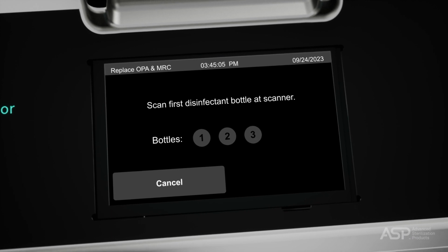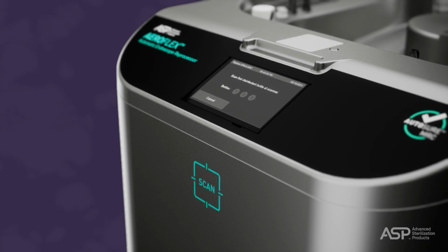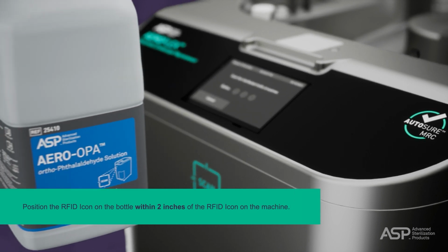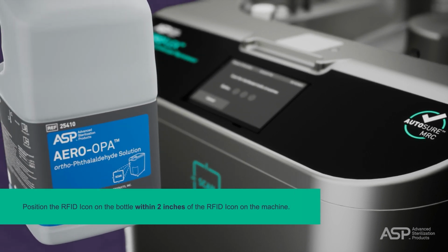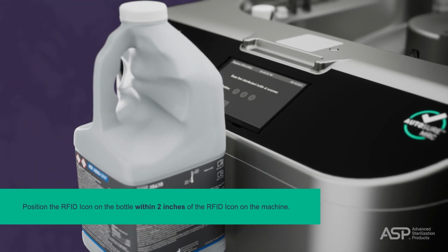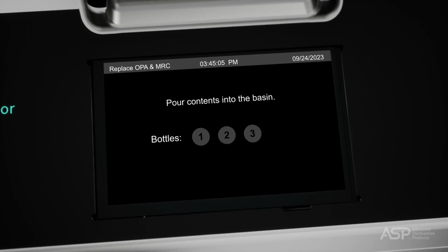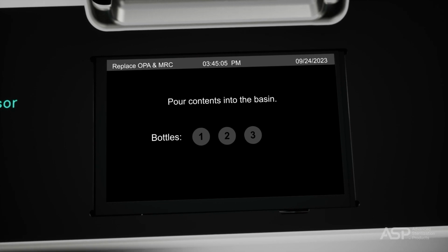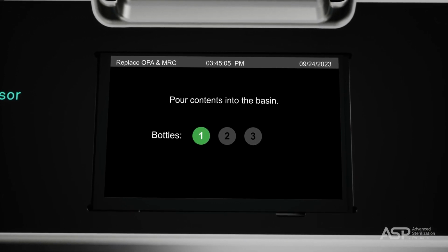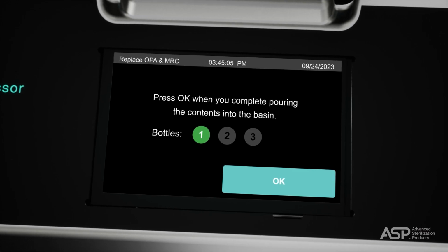The screen will prompt you to open the basin lid and scan the first bottle. For proper scanning, you'll position the RFID icon on the bottle within 2 inches, 50 millimeters, of the RFID icon on the front of the ASP AEROFLEX AER. The system will beep when the bottle is successfully scanned. Upon successful scan of the bottle, the system will beep, the gray icon turns green, and prompts the user to pour OPA into the basin. Once you finish pouring the first bottle into the basin, press OK.